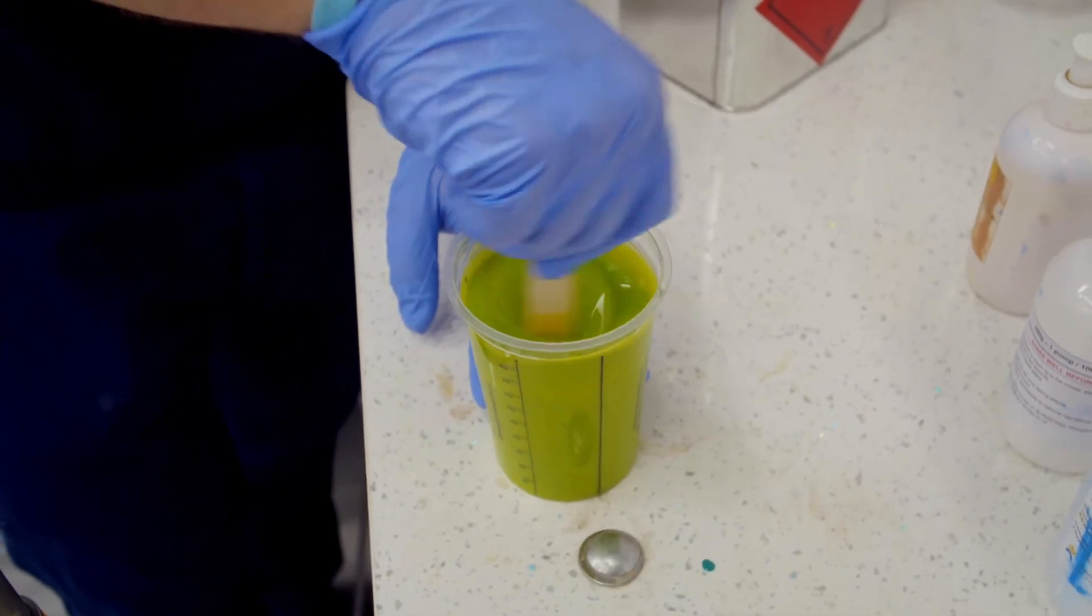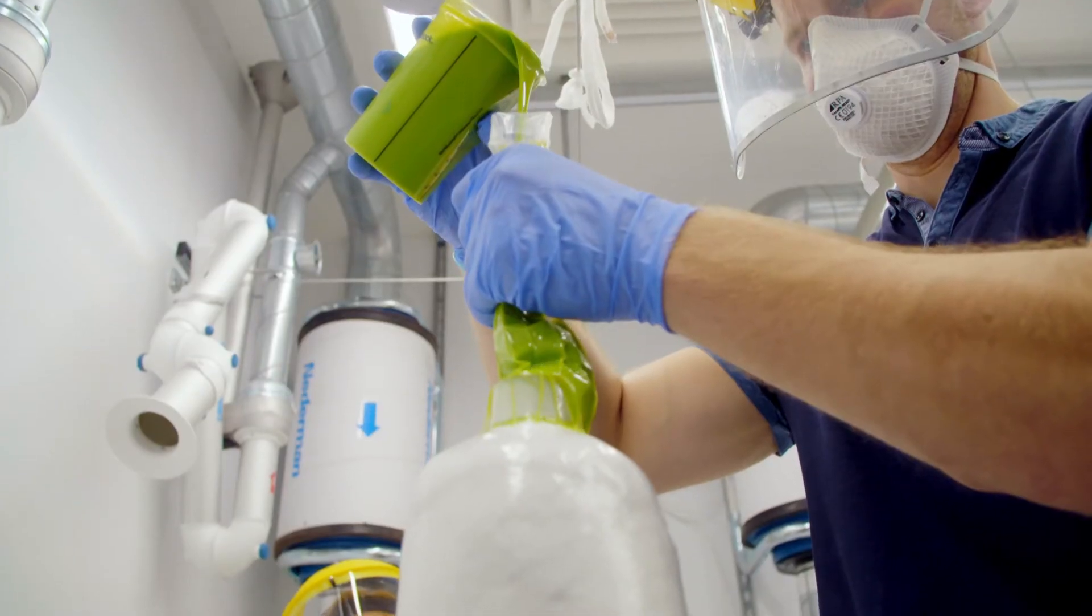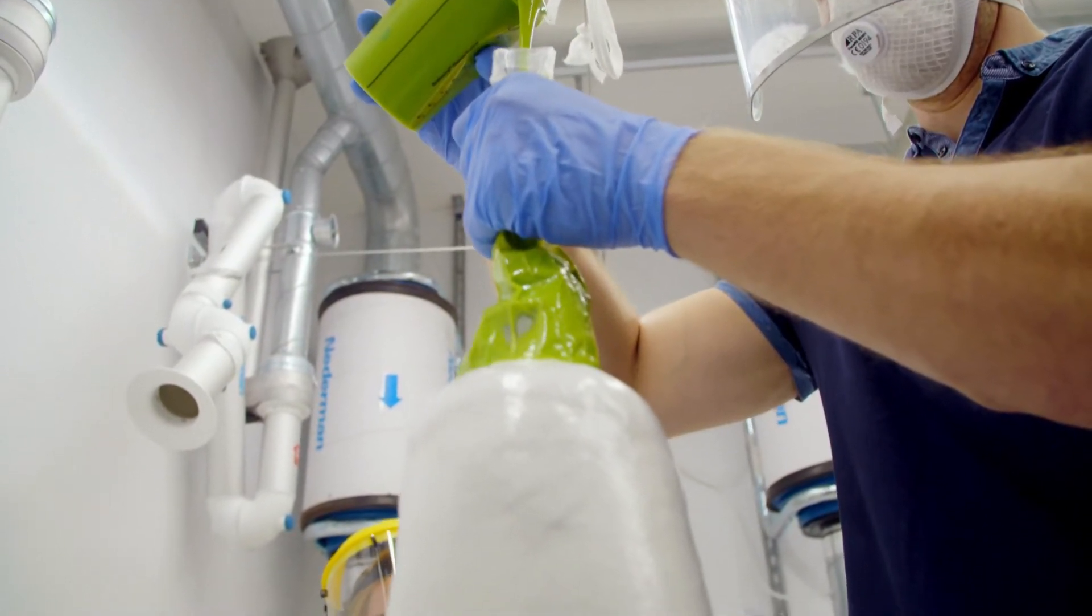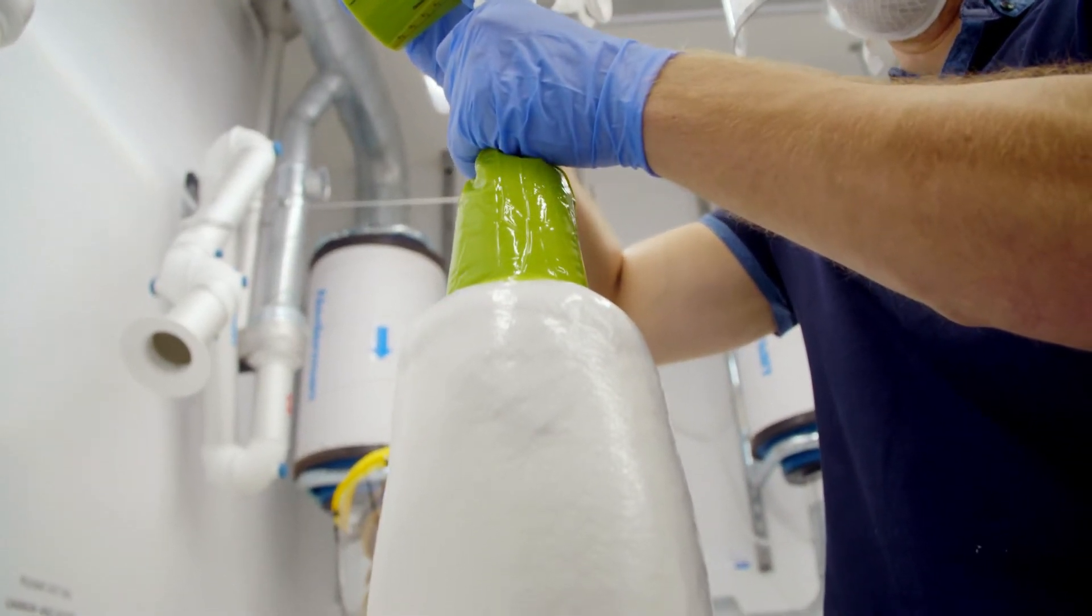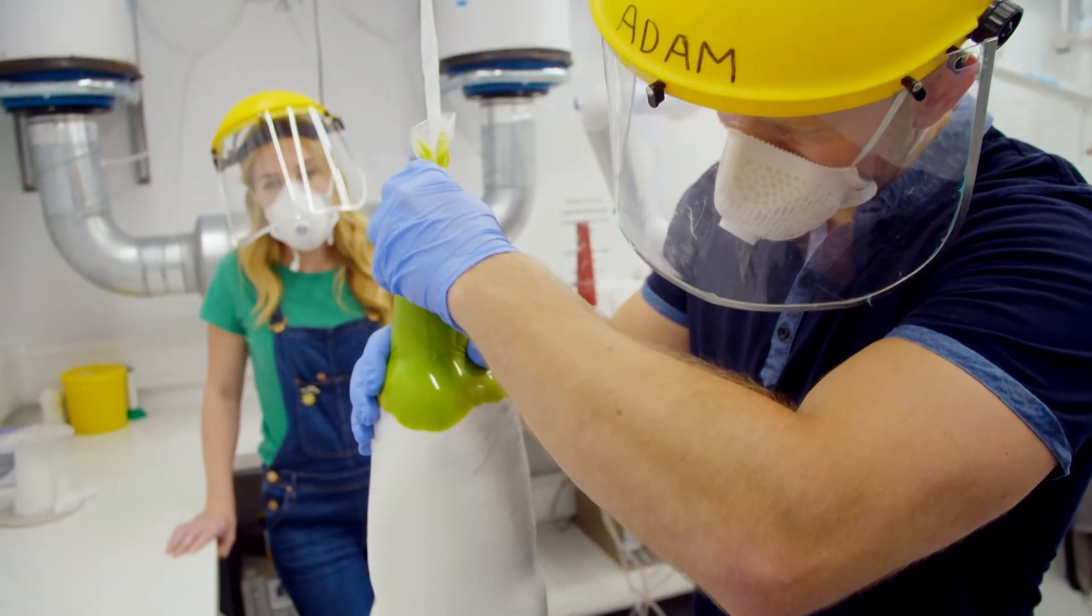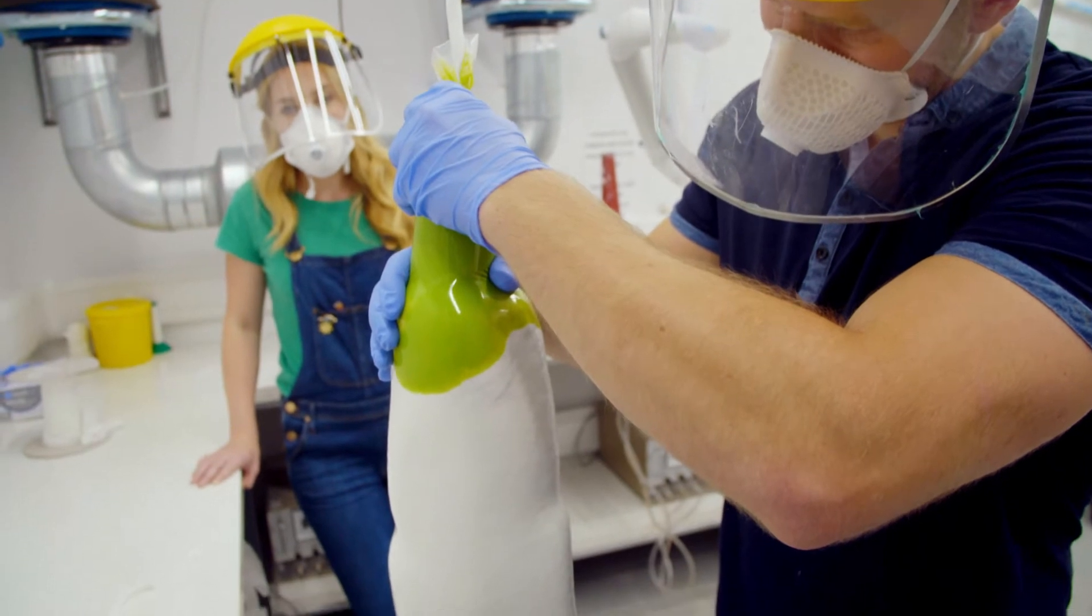Look, the resin is green. And Adam pours the resin in through a bag. It's like squeezing paint out of a tube.